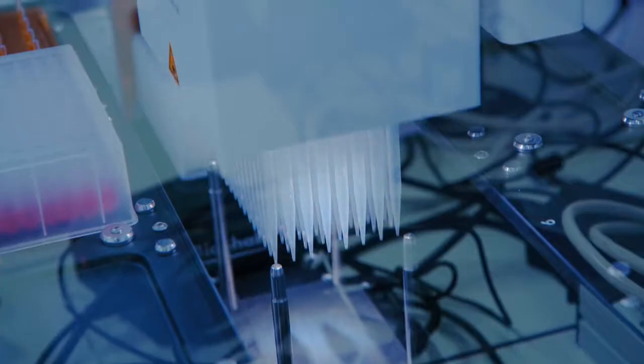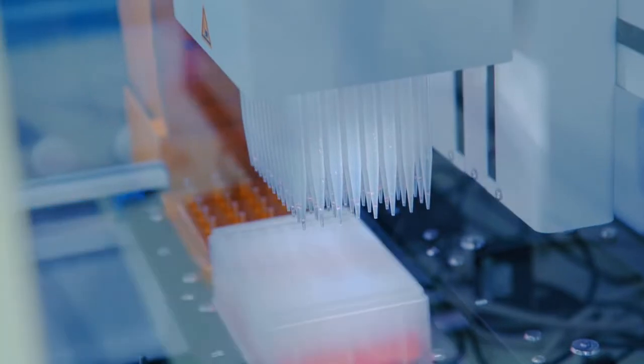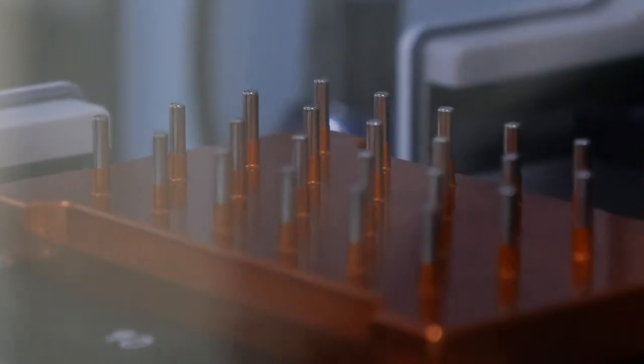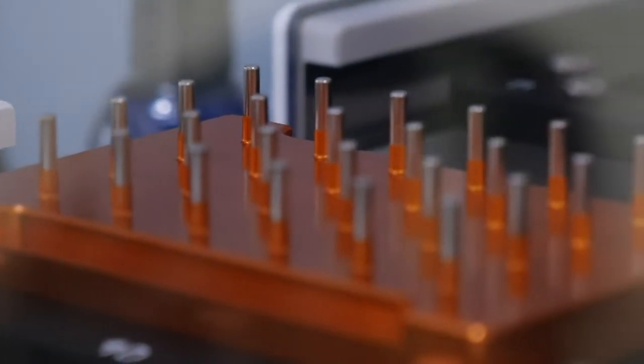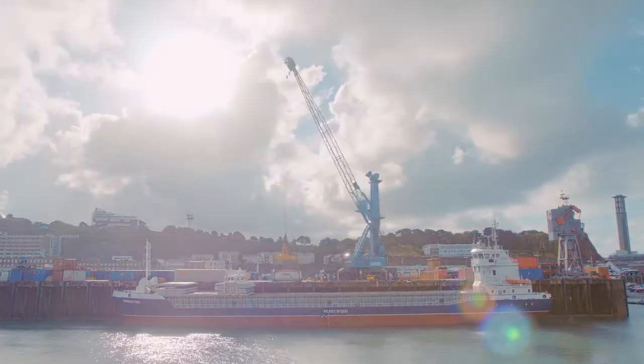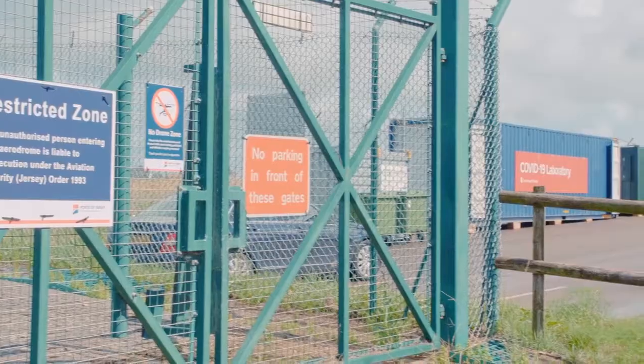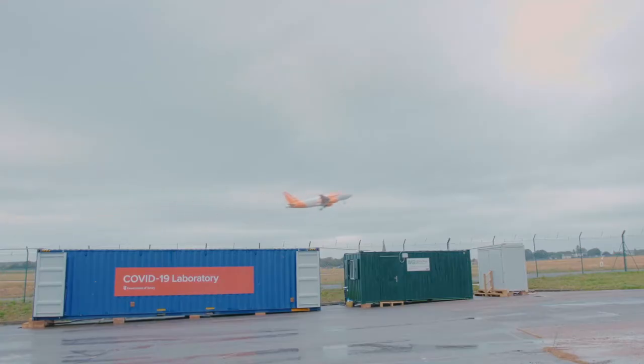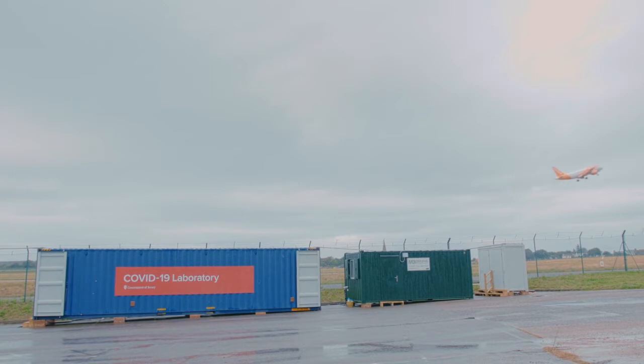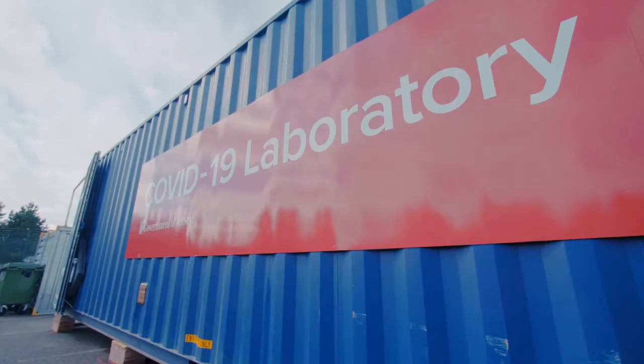Literally all we're doing is getting a really lean flow of maximizing as many specimens as we can to get the results out, to keep the island safe and allow transport, the ferry, the airport to remain open and keep the economy buoyant.